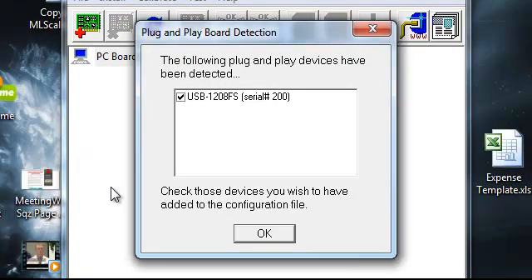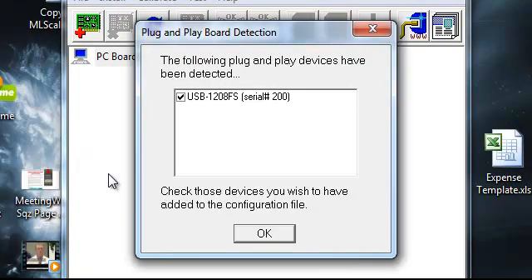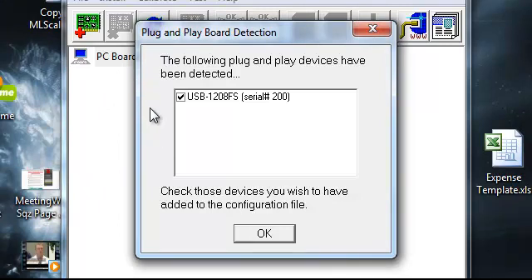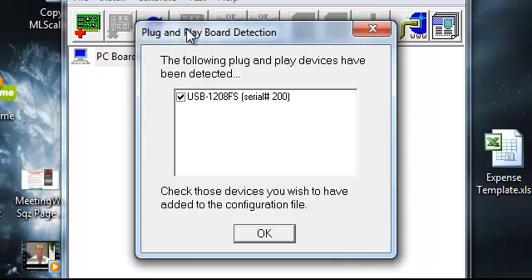Now, this is what you should see then. It'll do its thing. It'll run and it'll search for the JVA or the BioPak device that you have plugged in, JawTracker, EMG, etc. And this is what you should see. You should see this first window, and then another window on top of that.